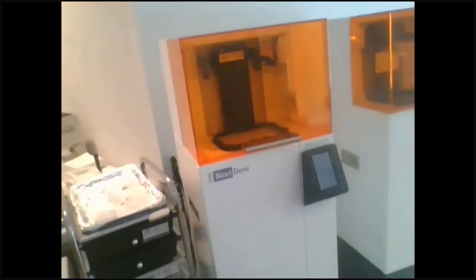So in my office here, I have two Figure 4 printers, and then I have my Fab Pro, which I still need to get a little stand for, so you can see the Fab Pro there. If you're just looking for an entry level printer that doesn't do all of this fancy stuff and is really not as fast at all, we still have that Fab Pro, and that's an entry level of $2,500.